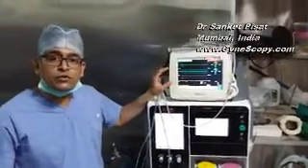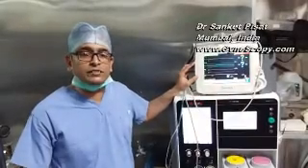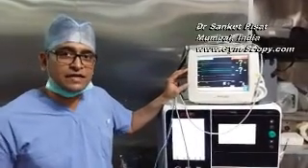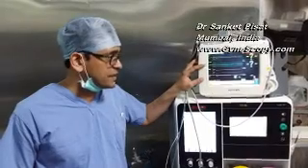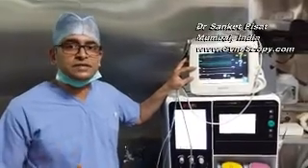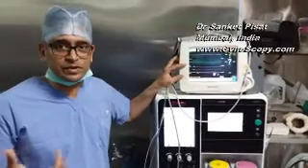Another important point to look for in the NIBP machine is the presence of an EtCO2 probe and monitor, because we are going to be using carbon dioxide, we are going to insufflate carbon dioxide, which might result in the carbon dioxide level in the body going up, and an EtCO2 monitor which is there in the OT will help us to find out if the patient is having this CO2 toxicity, and to either stop the surgery or withhold the surgery for some time if the patient is showing signs of hypercarbia.